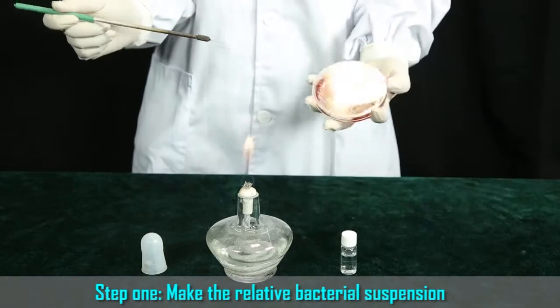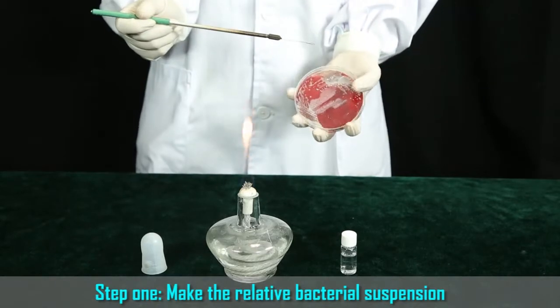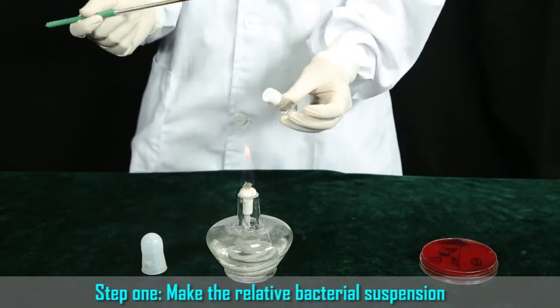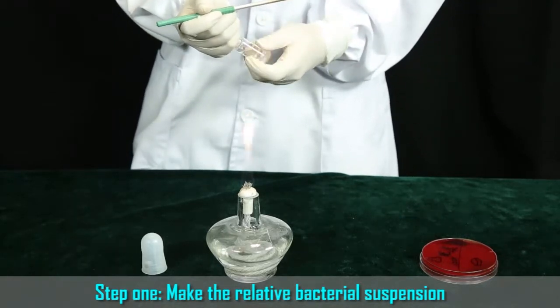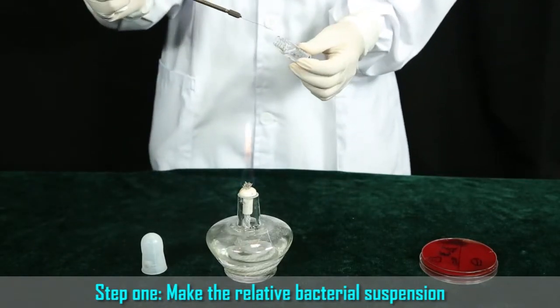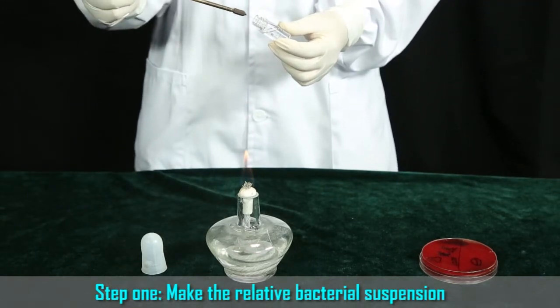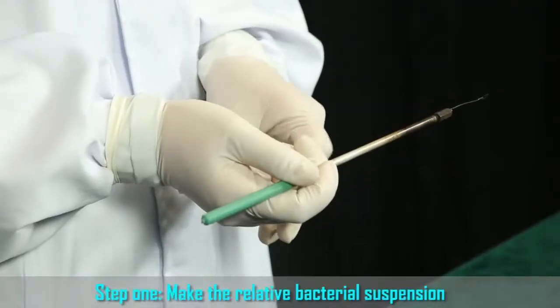B. After the heated inoculating loop is cold, pick up the sterile pure colony from the agar plate. C. Hold the diluents bottle in the left hand and burn the bottleneck for about 3 seconds. D. Unscrew the diluents bottle cover and then burn the bottleneck and cover for about 3 seconds rapidly for disinfection. E. Insert and rotate the inoculating loop, which has the pure colony, in the bottle and mix with the diluents. F. Burn the neck and cover for about 3 seconds and tighten. Put the burning inoculating loop aside.